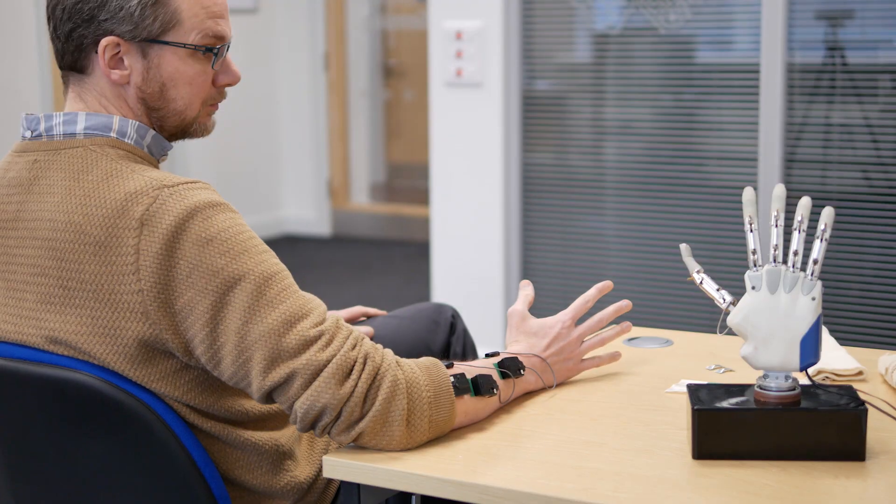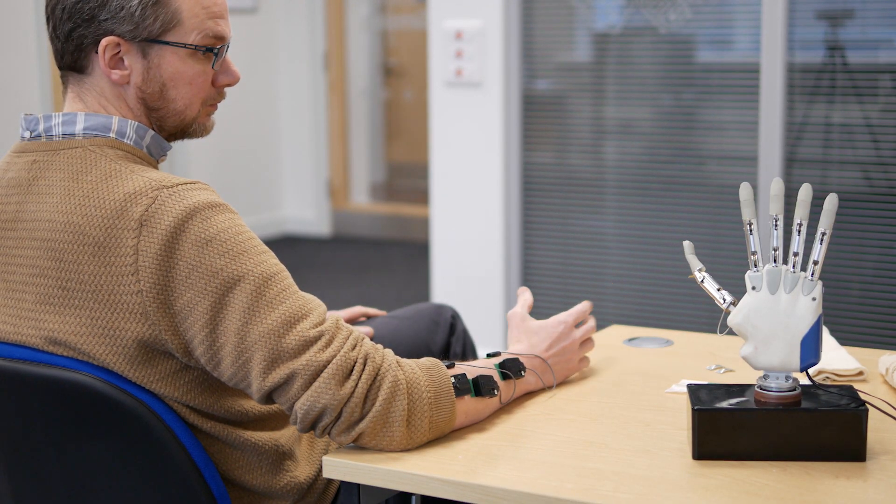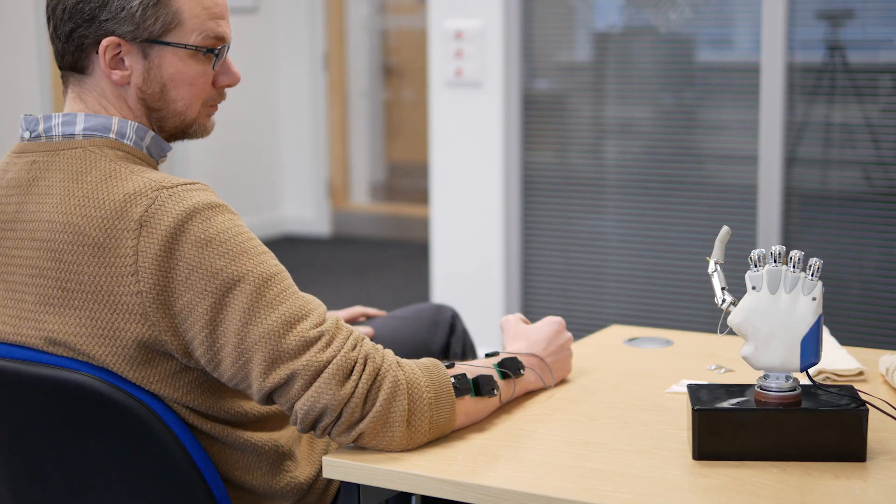In the future, when we have access to more information from the remaining nerves of the residual limb, we'll be able to control more detailed movements of the hand than we can now. Another advantage of the model-based approach is that we can estimate or predict information about muscles which are in fact not present.